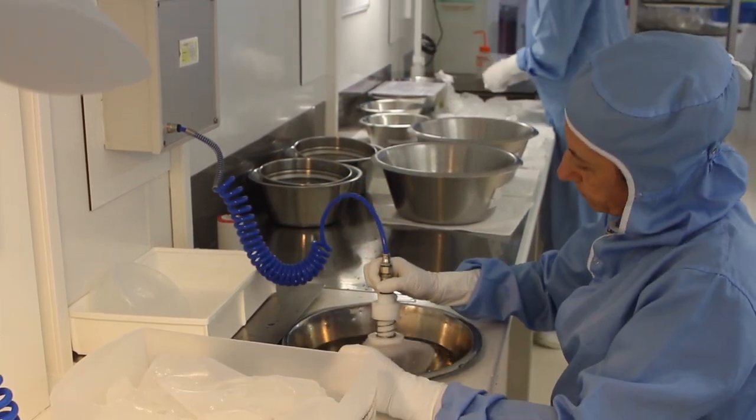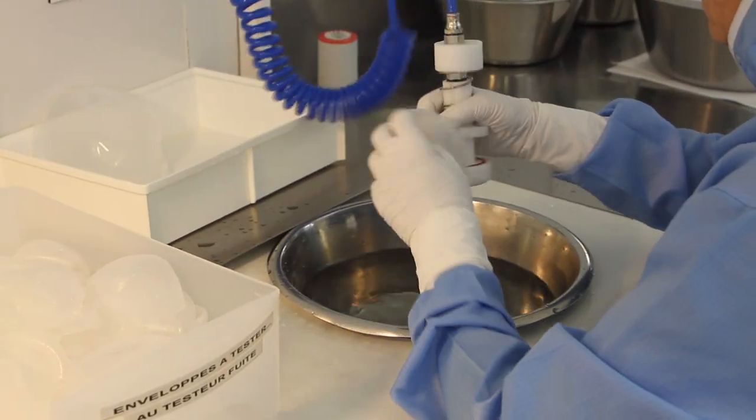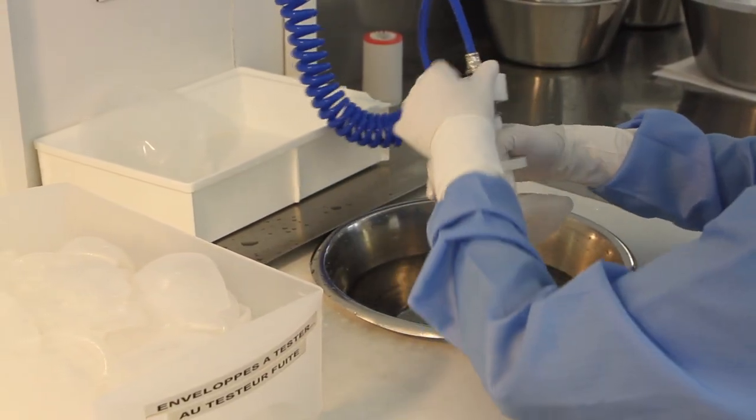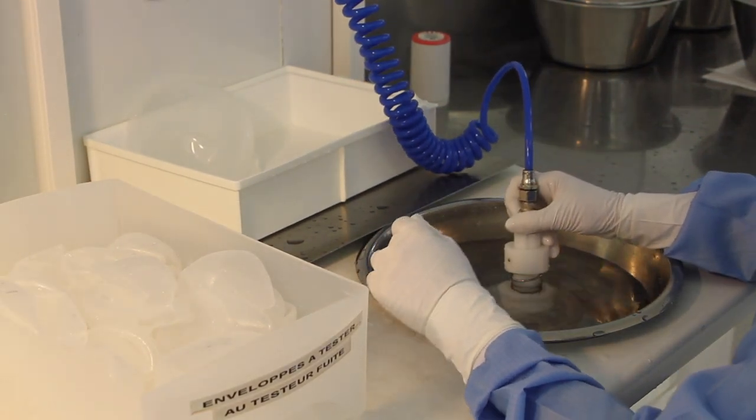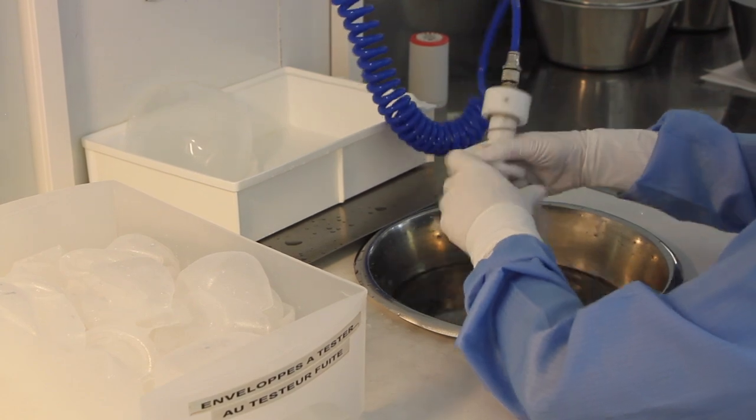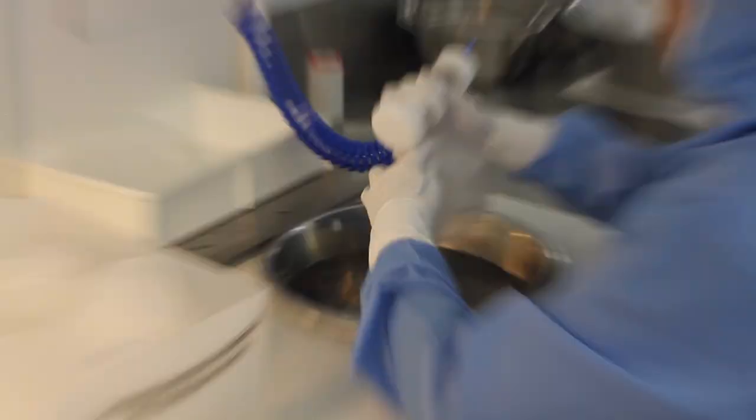So here it is a very important step as well before going to the filling of the breast implant. We are checking that the first big part of the process, the shell dipping, has been done in the correct way. So we have a quality control check in order to be sure that the shells are correct.